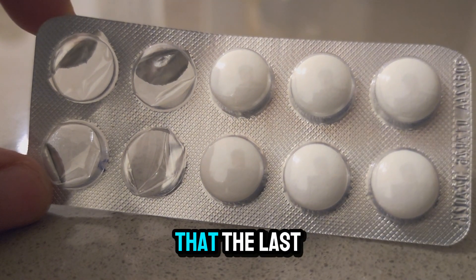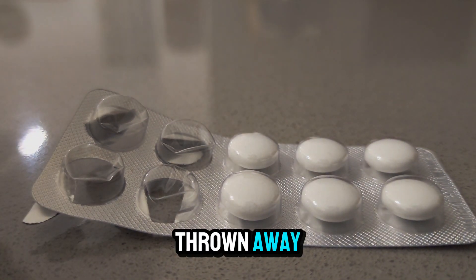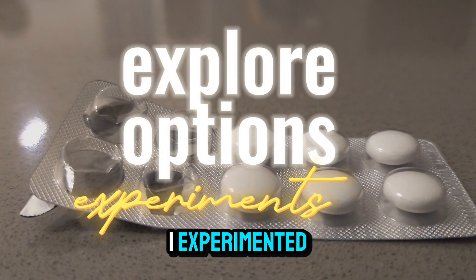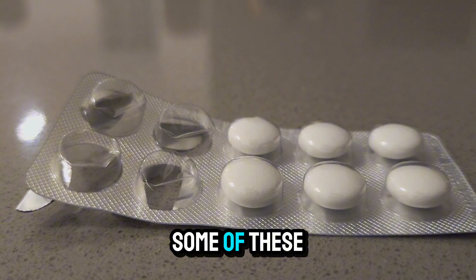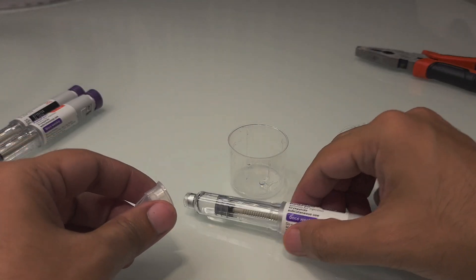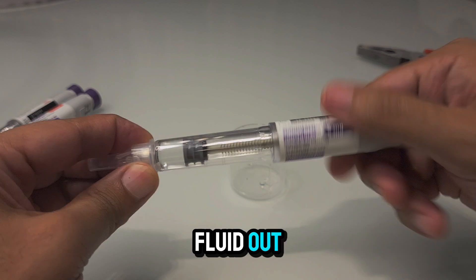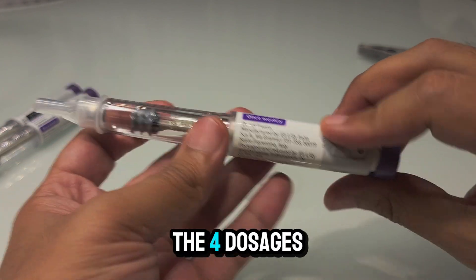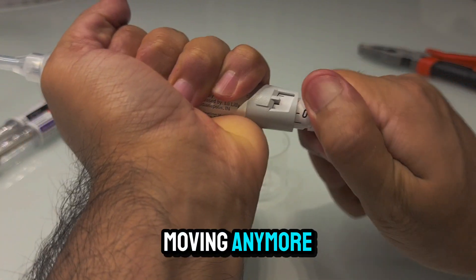This made me wonder that the last bit of fluid in the Mounjaro pen device shouldn't be thrown away, and we should try to explore options to utilize it. I experimented with four different pen devices that some patients have brought back to me. We will try to see if we can force some of this fluid out from a pen device that has already reached its limit after four dosages — the back is not moving anymore.